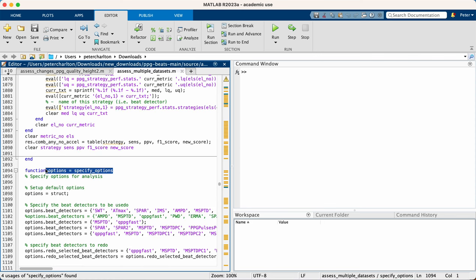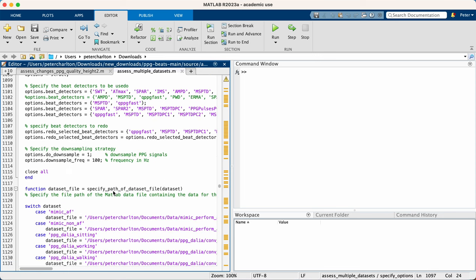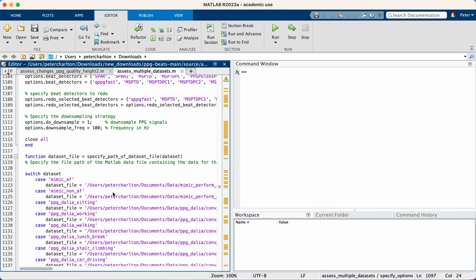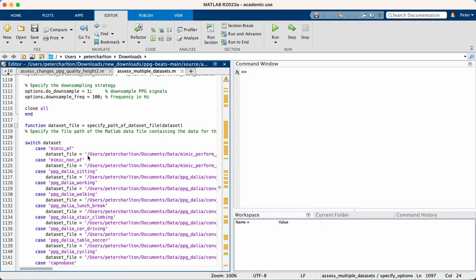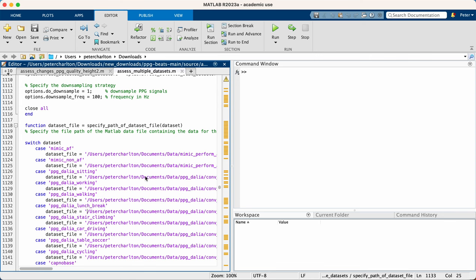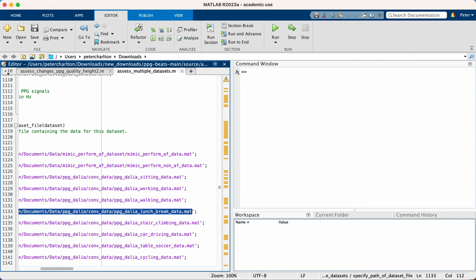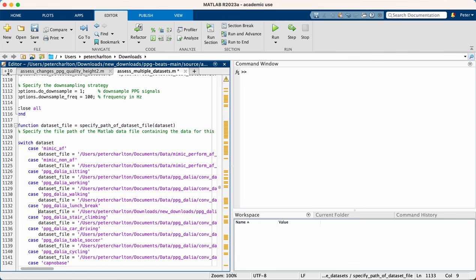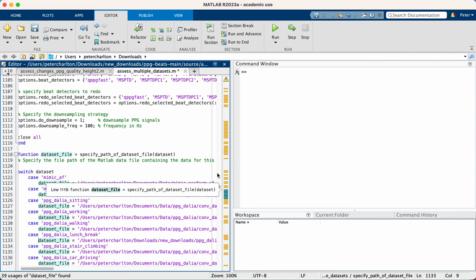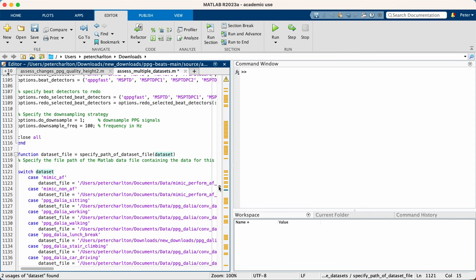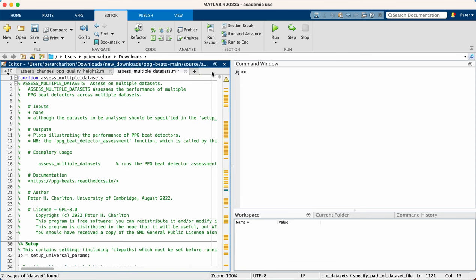So here we're now inside that function. And scrolling down there are file paths for each of the different datasets that the toolbox is commonly used with. And we're interested in this PPG Dalia lunch break dataset so we'll insert the file path there just pasting it in. Okay so now we are ready to run this analysis.